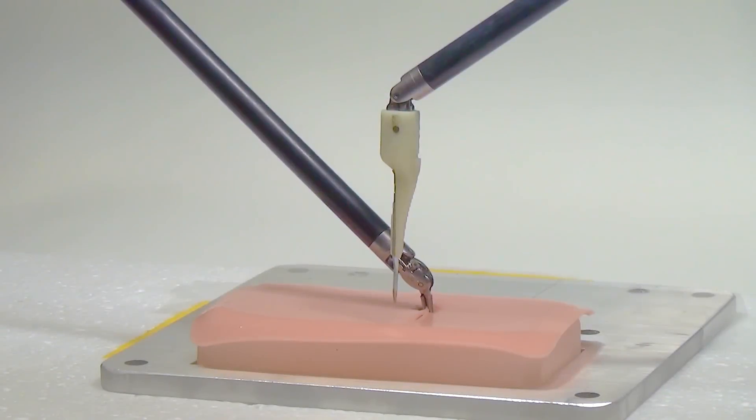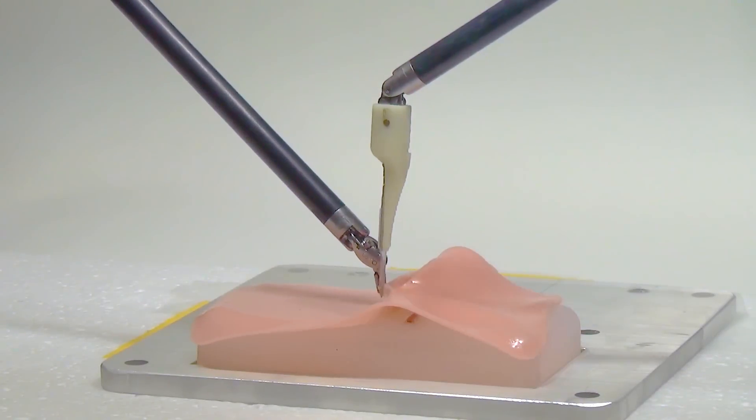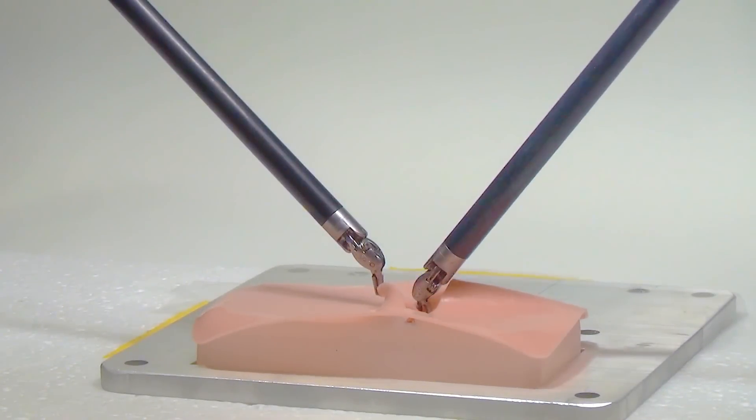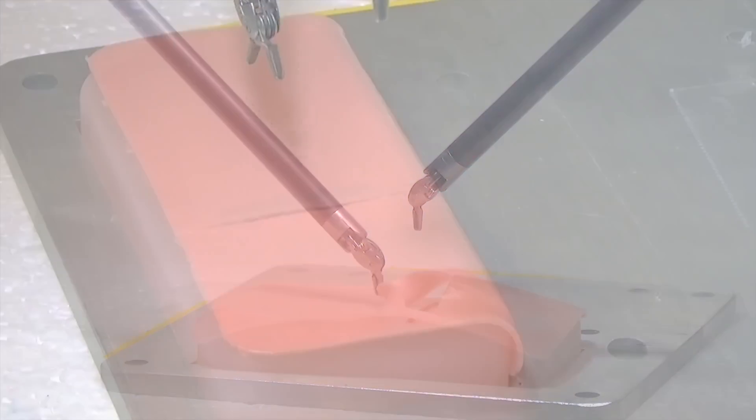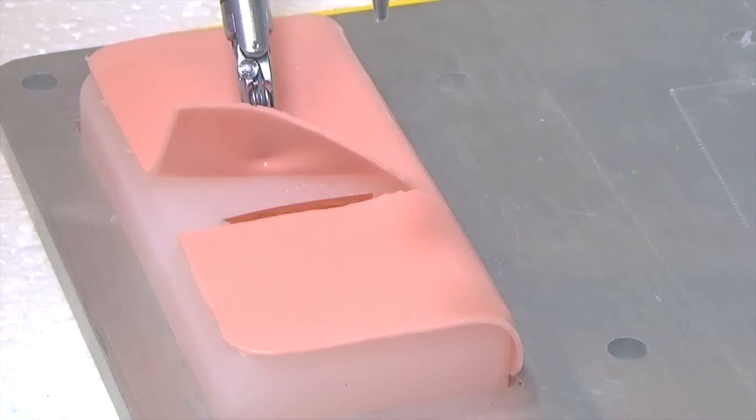Here are some failure modes. We are working on experiments to characterize the reliability of each step, and on incorporating computer vision and new probing algorithms to improve robustness.